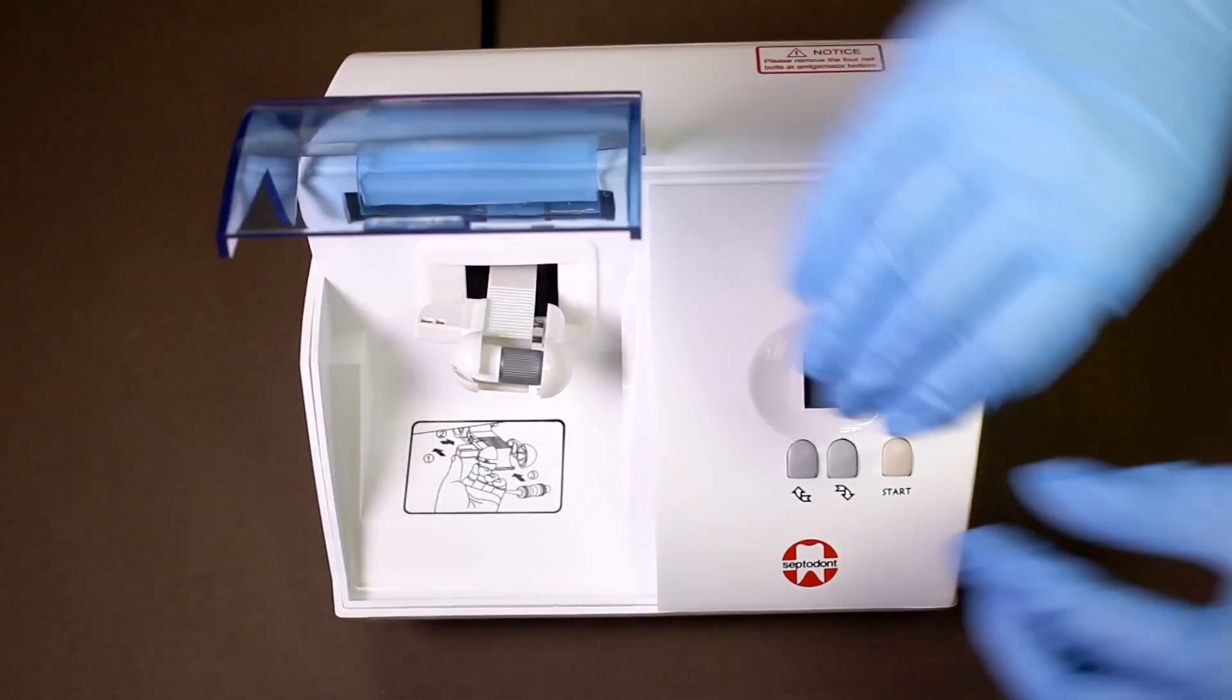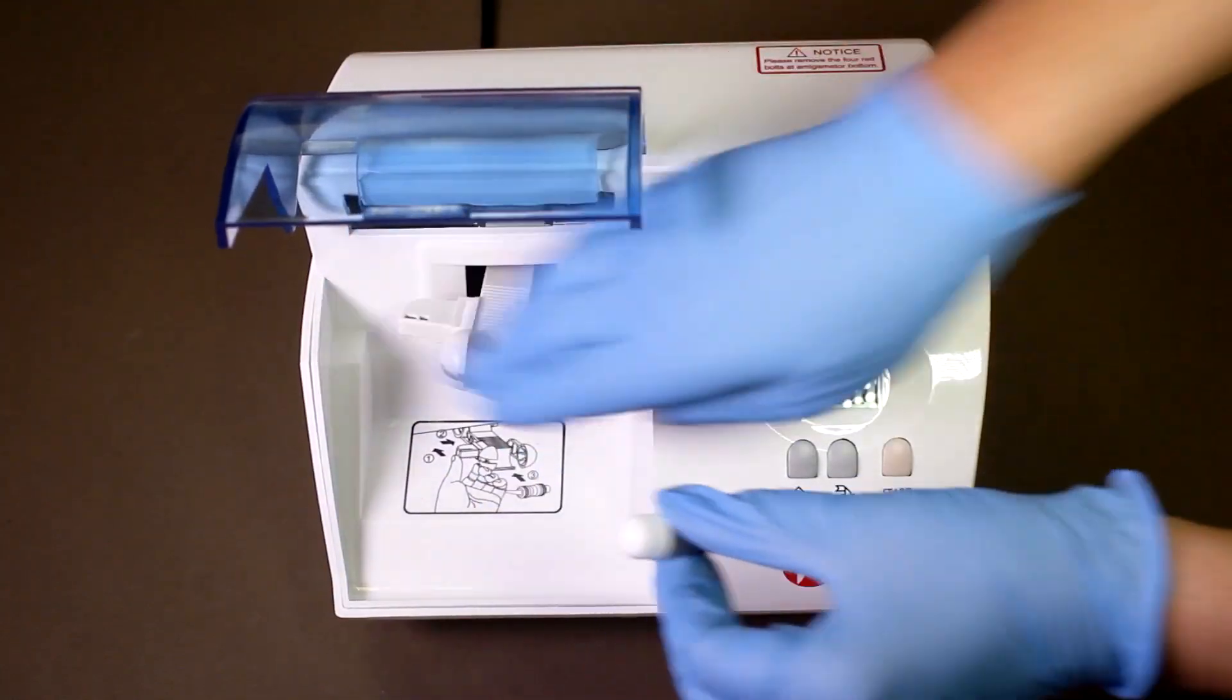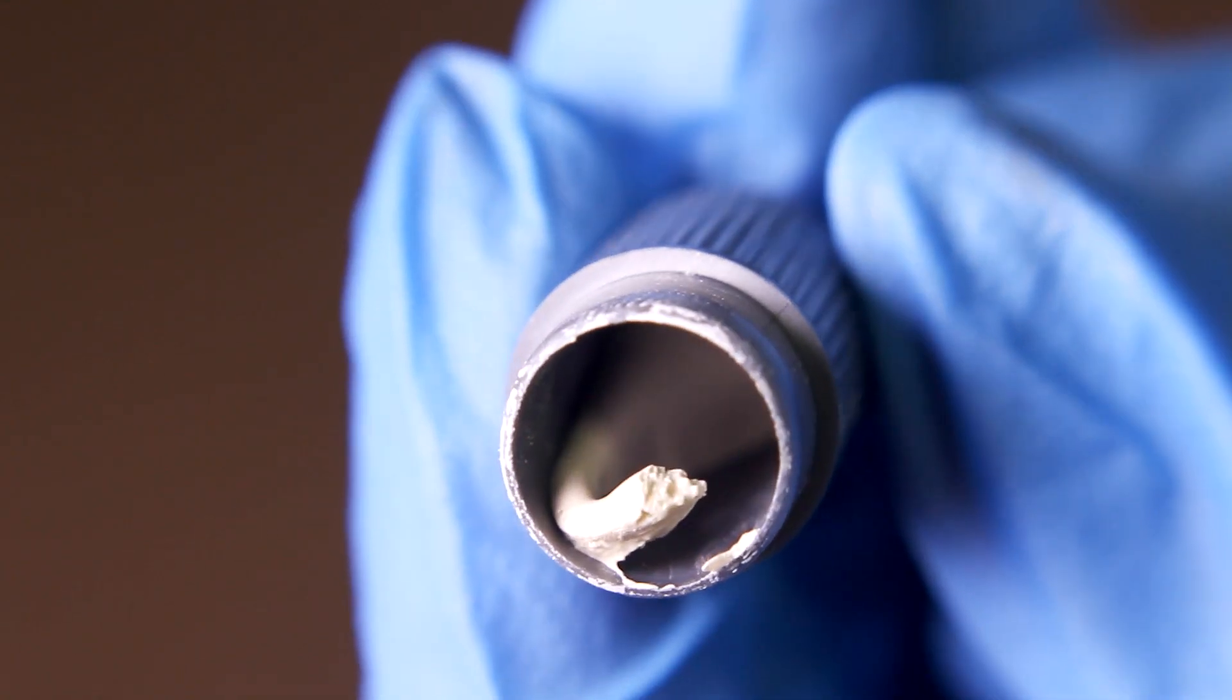The correct consistency will show a line of Biodentine along the capsule when you open it.